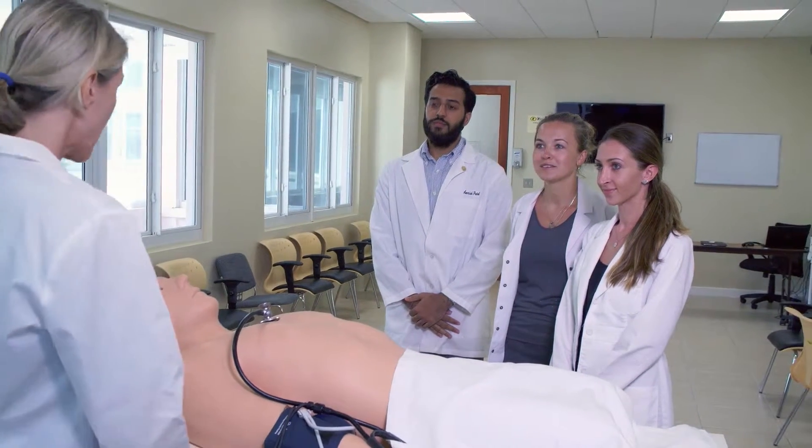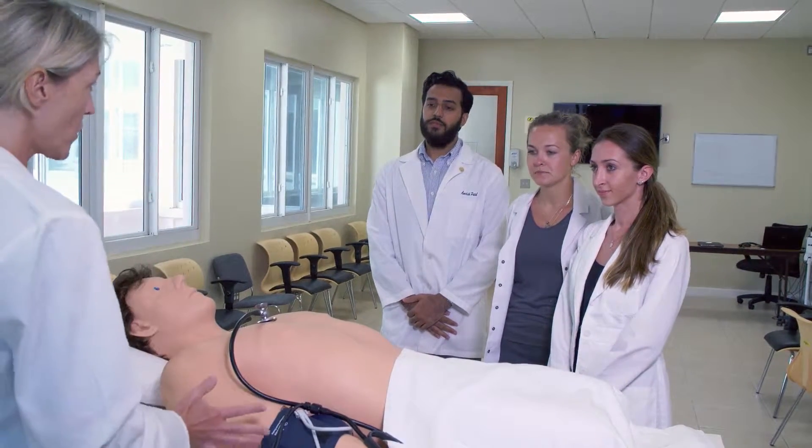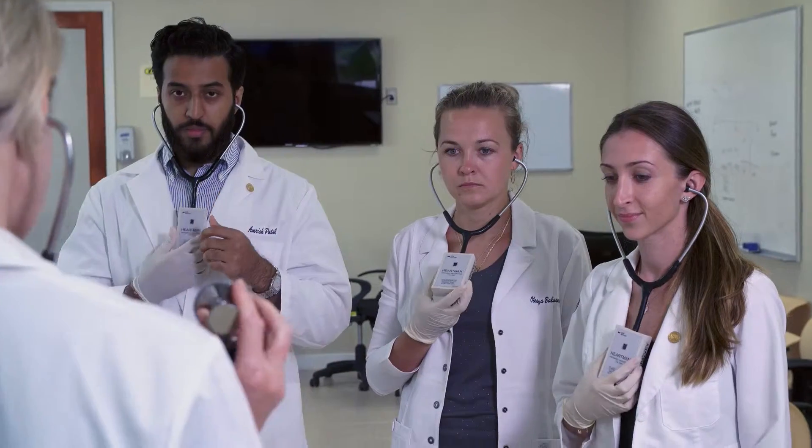Welcome everybody. This is one of our two Harveys. He really helps us put into a clinical context the stuff that you're learning both in physiology and in clinical medicine. What I'm going to demonstrate for you is a normal heart sound.